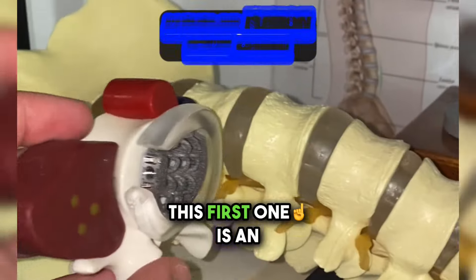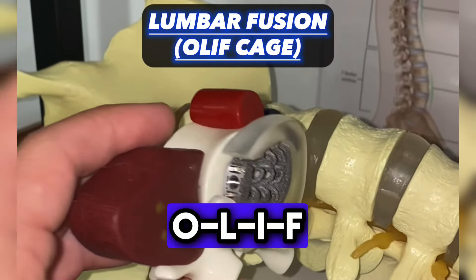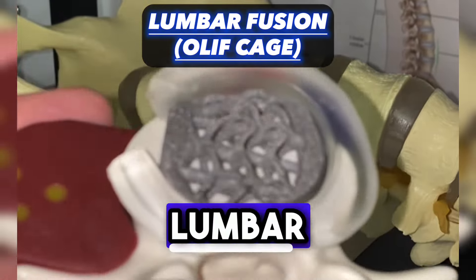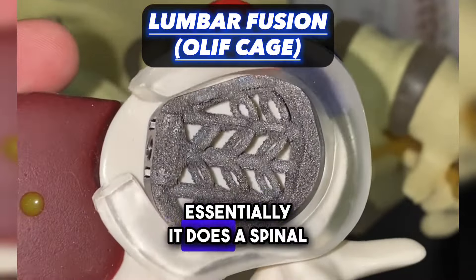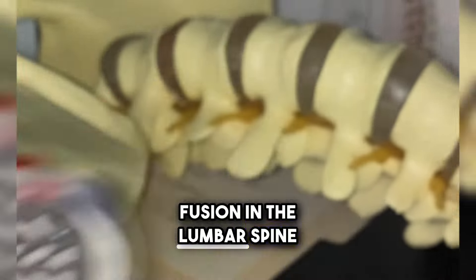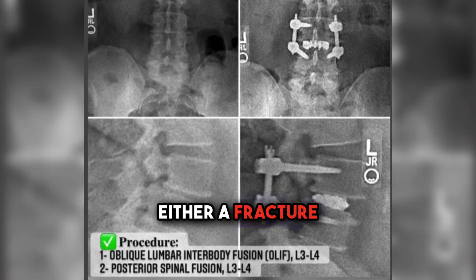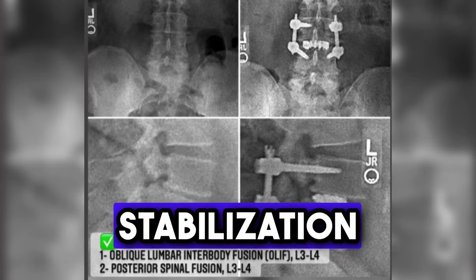This first one is an OLIF cage — O-L-I-F — Oblique Lumbar Interbody Fusion. Essentially, it does a spinal fusion in the lumbar spine. This is used when there's either a fracture or instability in the spine, and it provides stabilization.